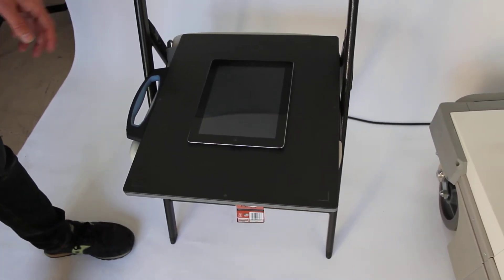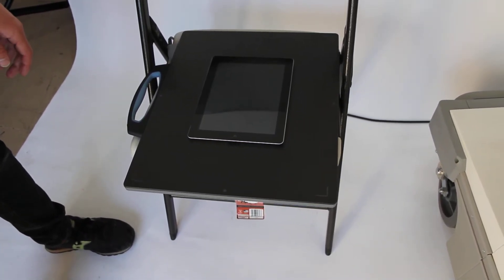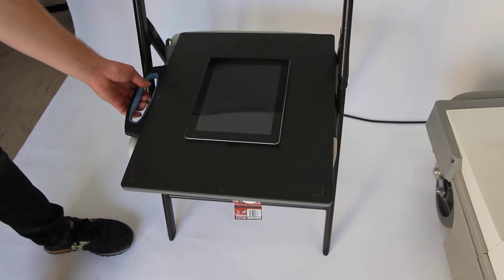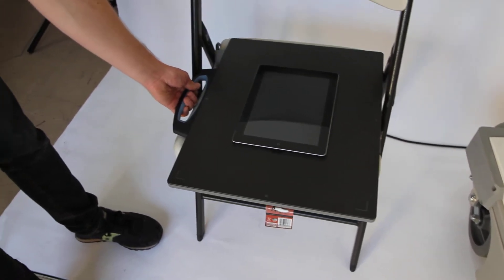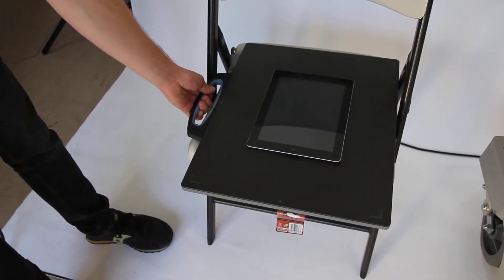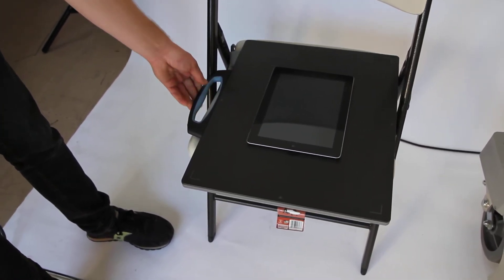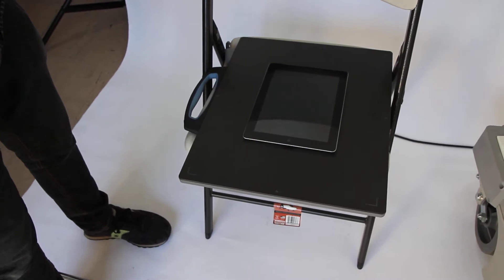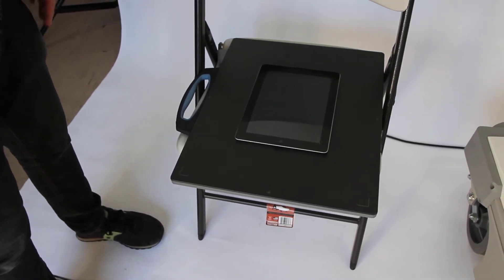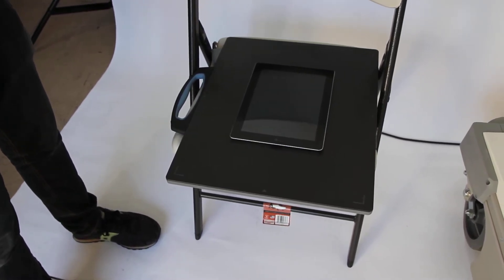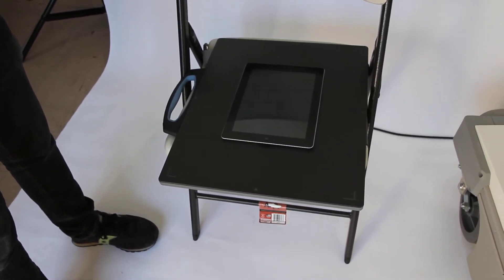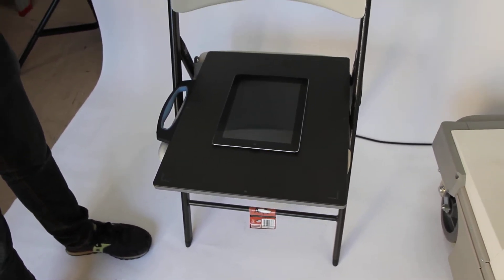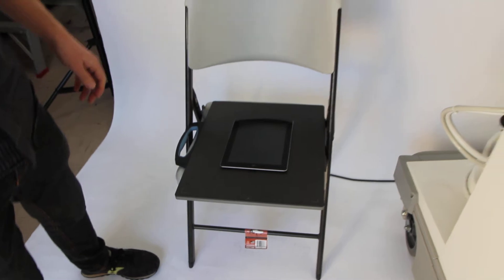Both the Cesium and the Gadox have this built-in handle here which works great for portable use to be moved either in a medical environment from the table to the wall stand, or for true portable use being used out in the field away from an x-ray room.